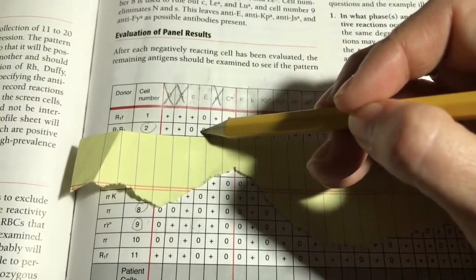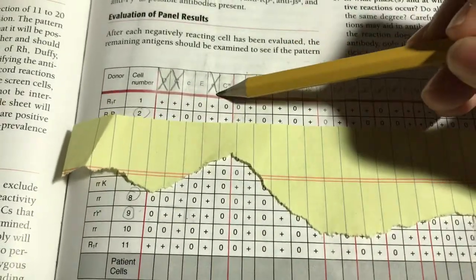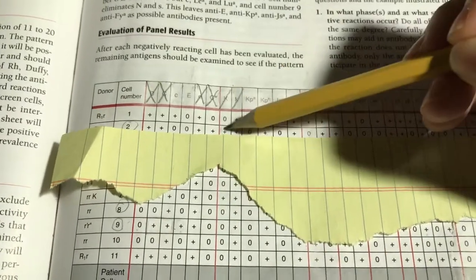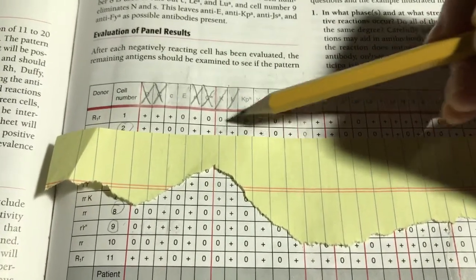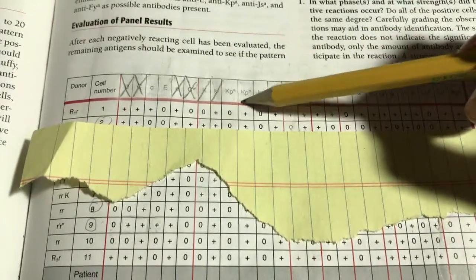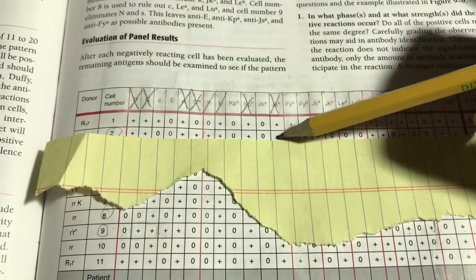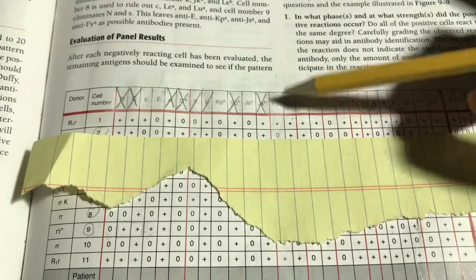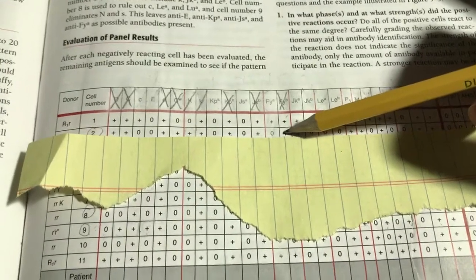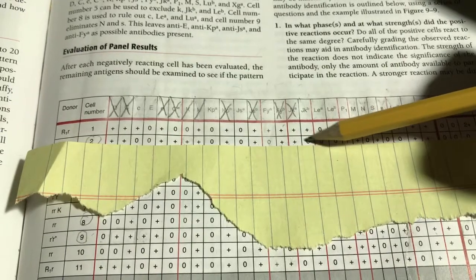So, I've got my negative cell. I circled it in case I got lost with this piece of paper. Ruling out big D. There is no little D, it's a placeholder. Ruling out big C. It's homozygously expressed in this cell. There is no little C. Just the big C antigens present. It's homozygously expressed. Little E's being homozygously expressed. Big E's present, or excuse me, little E's present. Big E is not present.